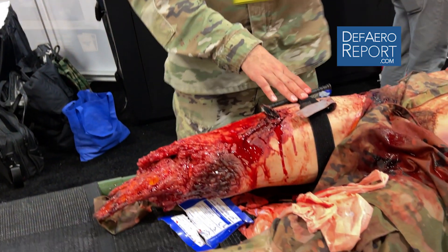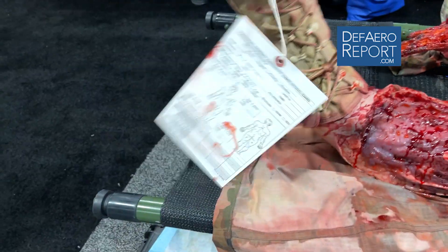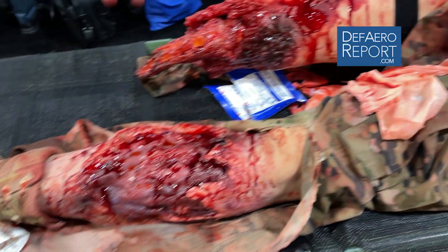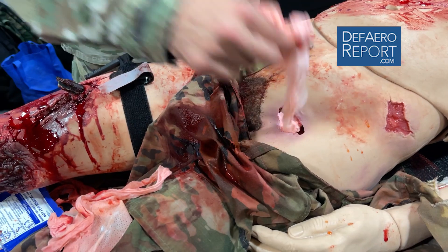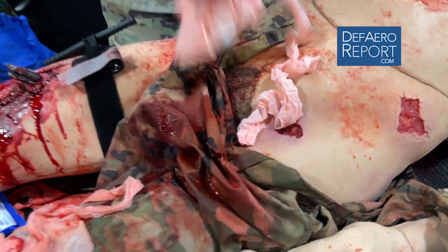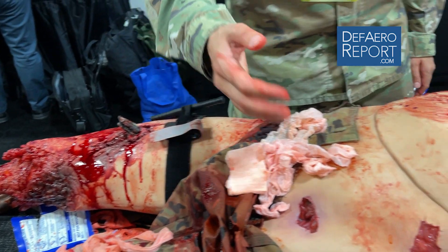The capabilities of this mannequin: we can do tourniquets, massive bleeds, and amputations. You see the broken leg here, which can be splinted. These wounds can be dressed — they do capillary bleeding. Up here we have a femoral bleed, which can be packed, and all these wounds are responsive to correct pressures and treatment methodologies to make sure they stop bleeding.